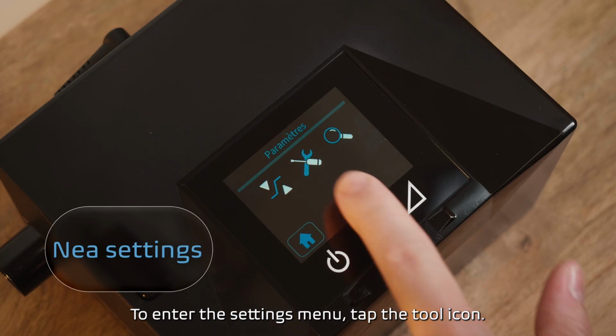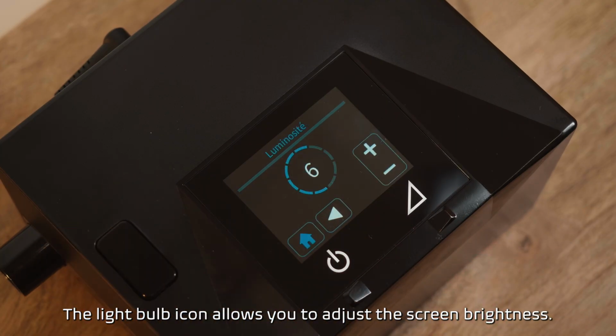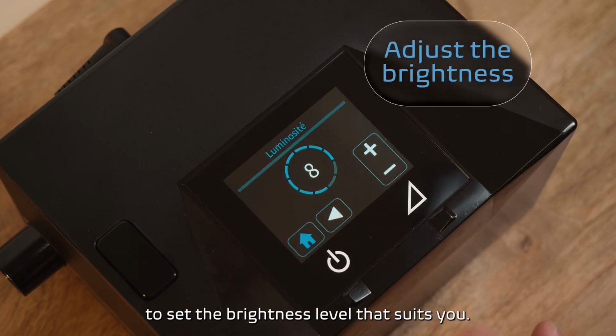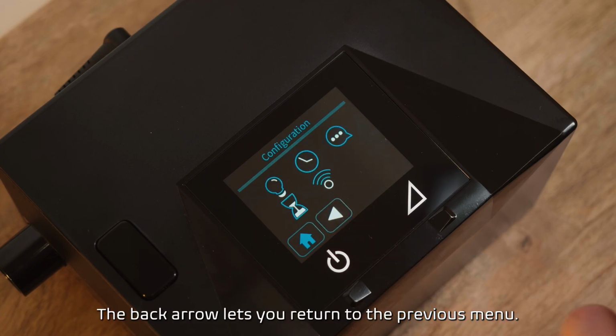To enter the settings menu, tap the tool icon. The light bulb icon allows you to adjust the screen brightness. Use the plus and minus buttons on the right side of the screen to set the brightness level that suits you. The back arrow lets you return to the previous menu.